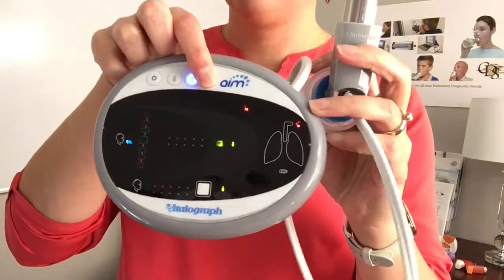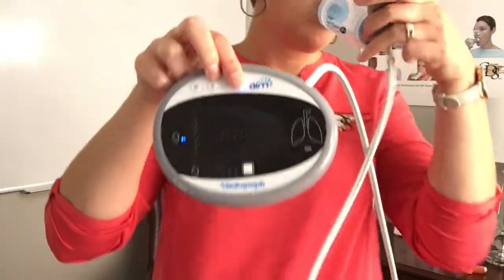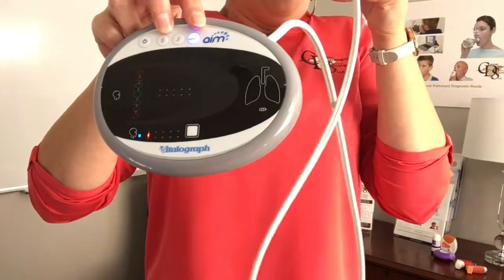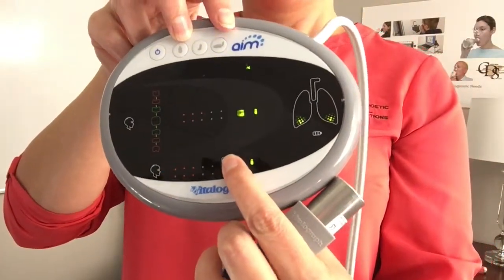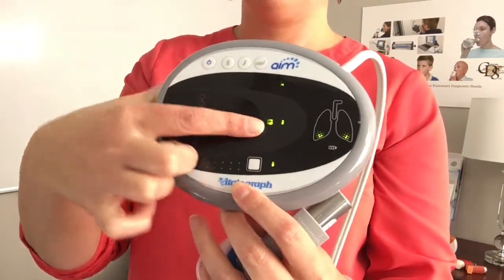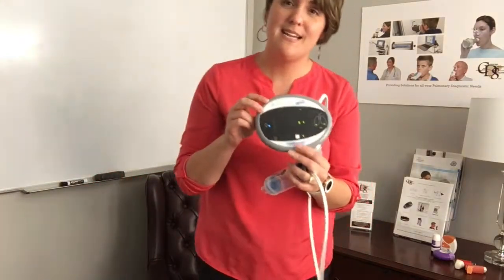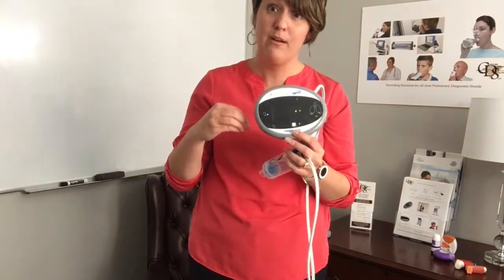So I'm going to add my chamber here and simply select the next device that I want to utilize. I can push the button — and you can see that I deployed my inhaler properly. I had good median flow, good inspiratory time, good breath hold time, and I had optimal deposition. This is what we want to show our patients, and the great thing is that you can repeat this over and over until they actually get it. Very important. This is the PMDI.